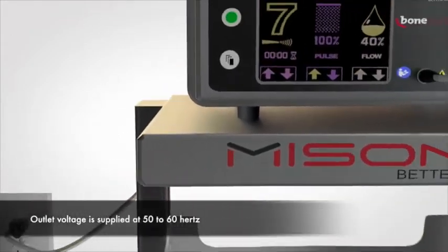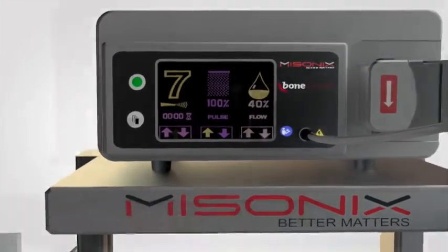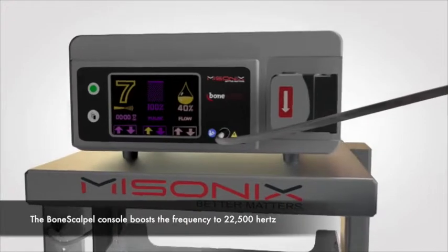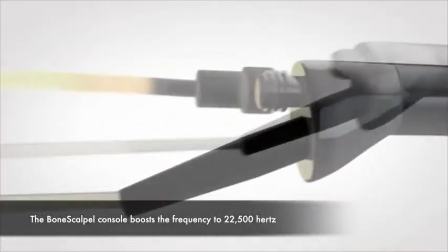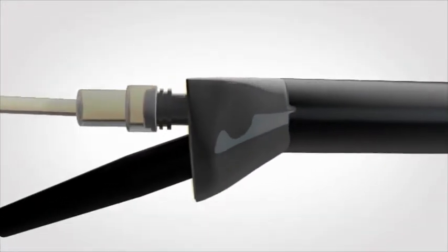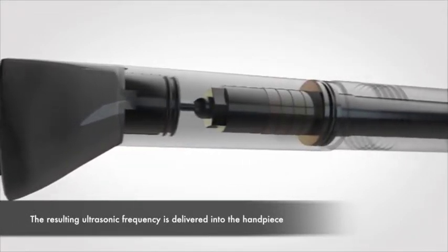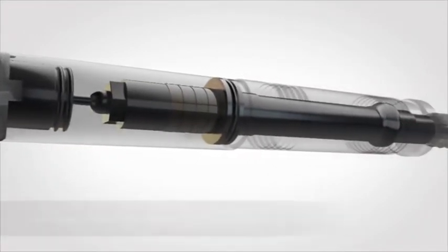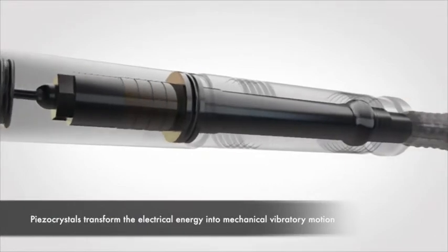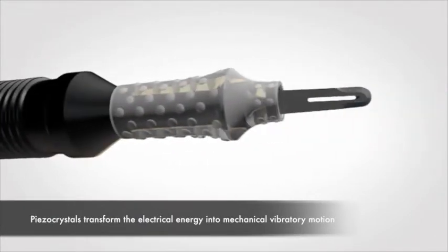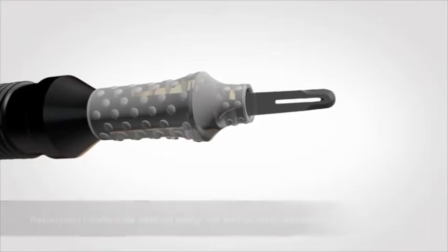Outlet voltage is supplied at 50 to 60 Hertz. The BoneScalpel console boosts this frequency to 22,500 Hertz. The resulting ultrasonic frequency is delivered into the handpiece. Piezo crystals transform the electrical energy into a mechanical vibratory motion.